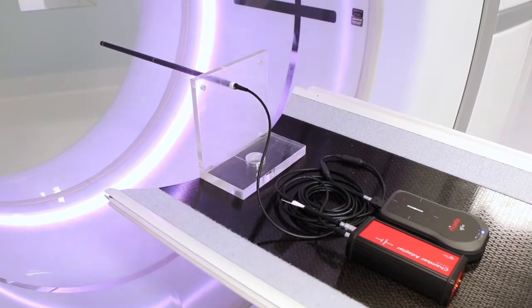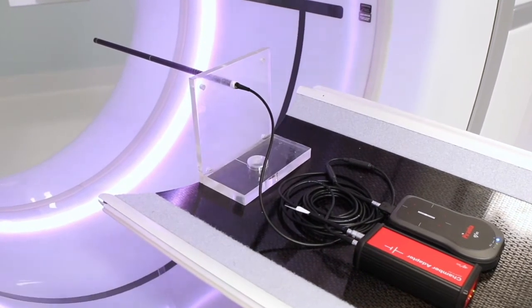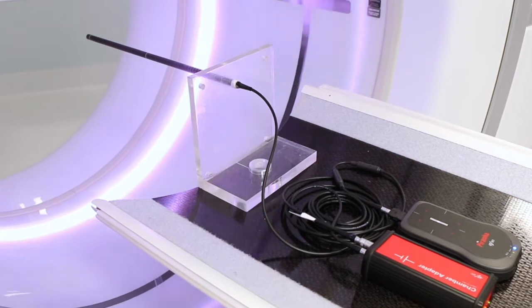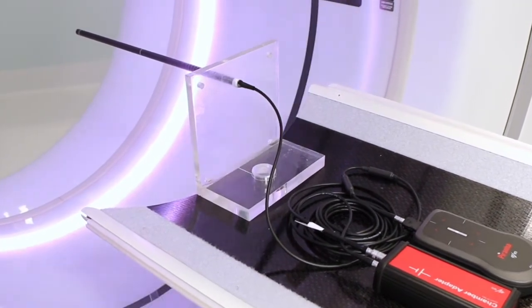In this instructional video, we will show you how to carry out a free in-air measurement using the 30cm CT ion chamber and the piranha.